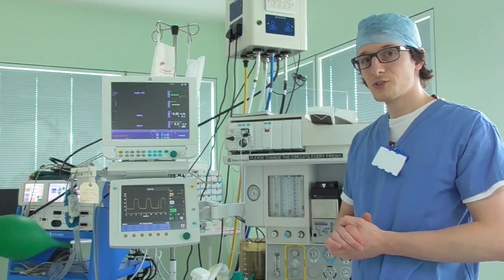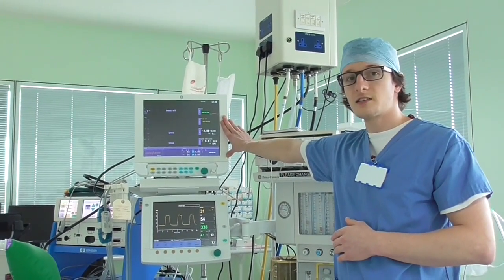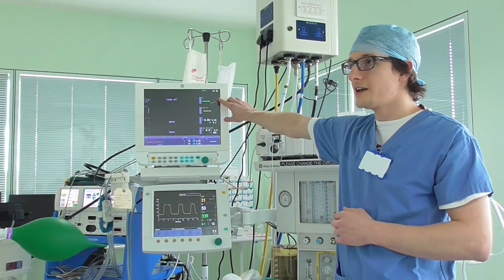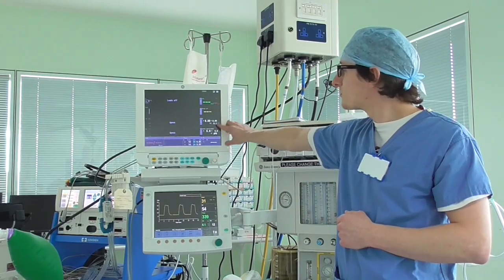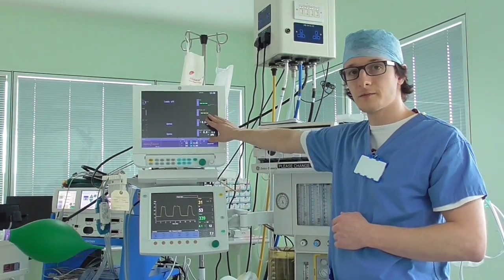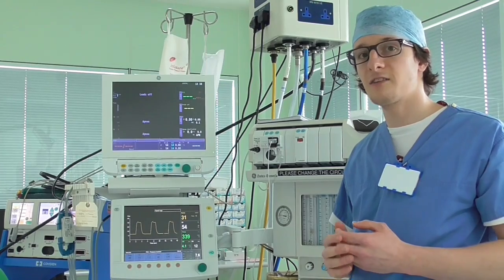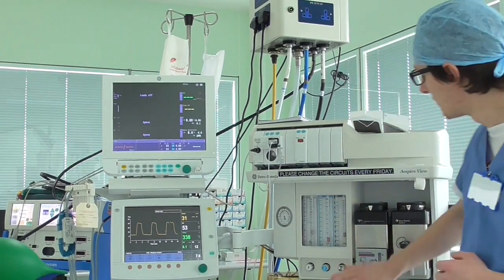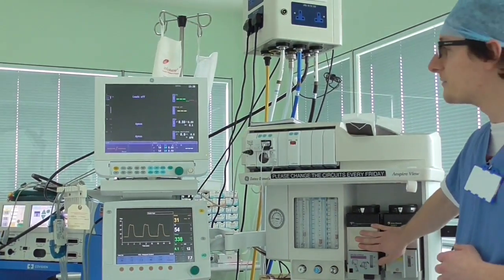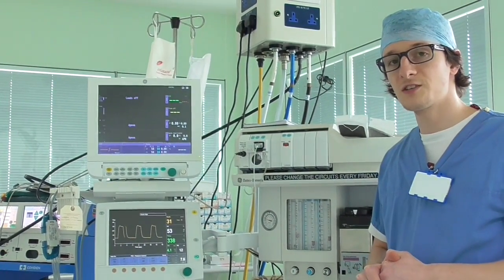The monitoring is slightly separate in that it provides pulse, blood pressure, and heart tracing. It also monitors the amount of anaesthetic that is delivered to the patient from the vaporizers and monitors the amount of carbon dioxide that is produced in the system.